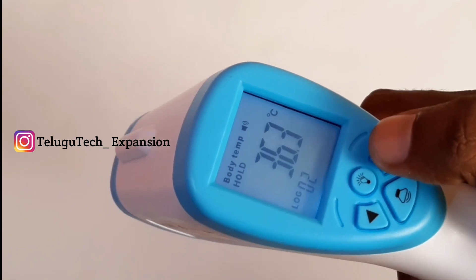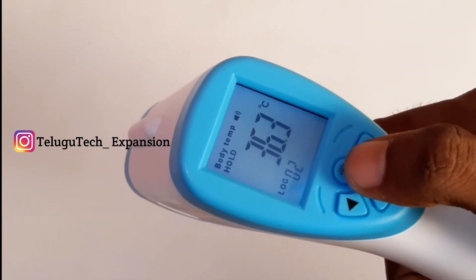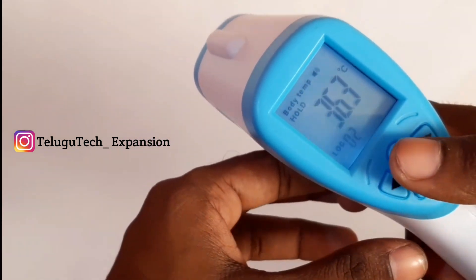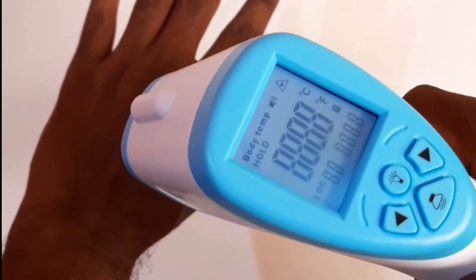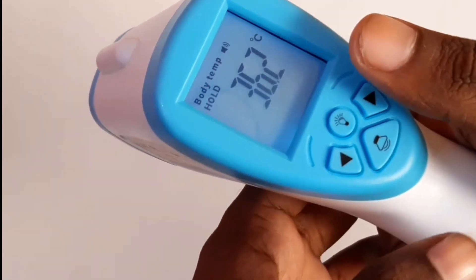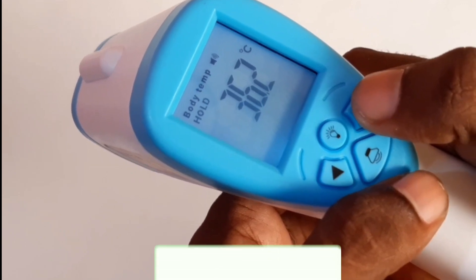Right to left. Now it is centigrade. This is the Fahrenheit. So we will change to Fahrenheit. I am going to check the modification — the indication button on the right side button.